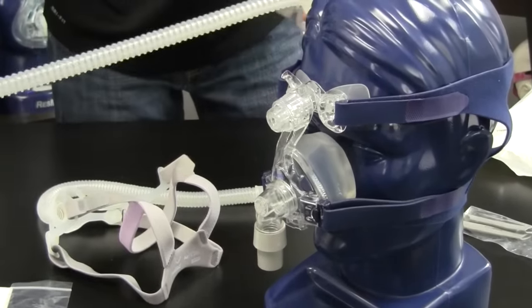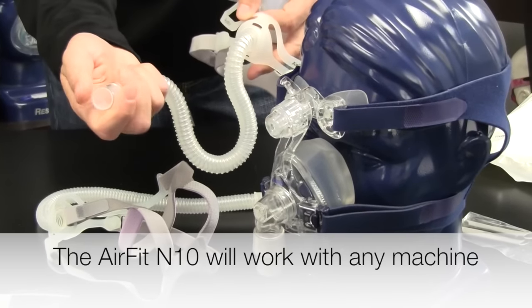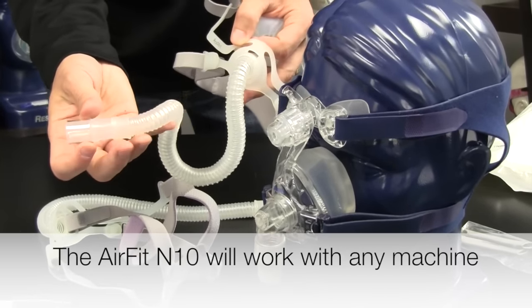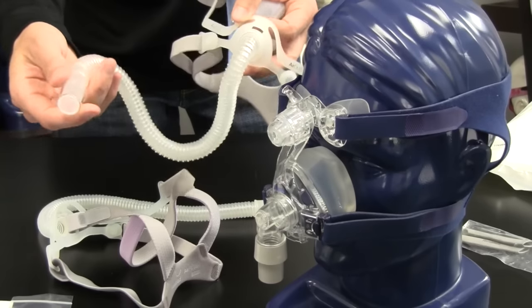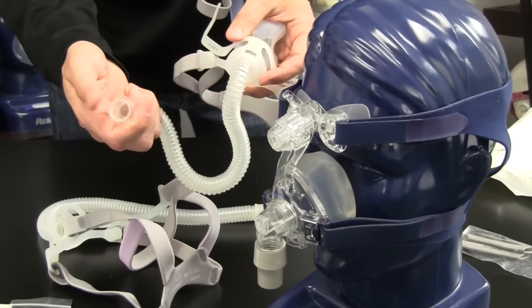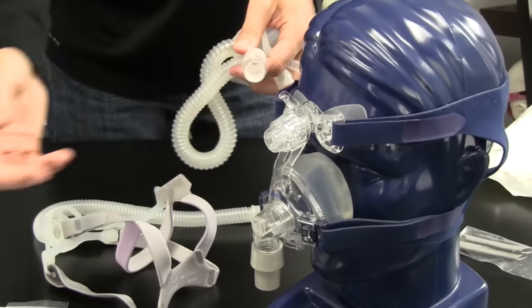This tubing is very stretchy. It has a swivel on the end. It will connect to any standard six-foot tube, eight-foot tube, ten-foot tube, a heated tube. It's a standard diameter. It will connect to your six-foot tube that will then connect to your machine.